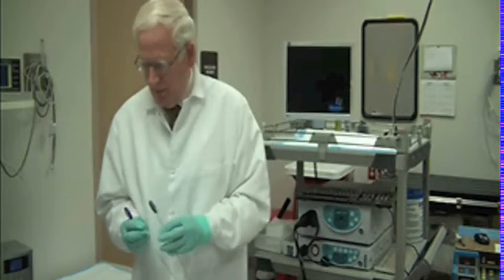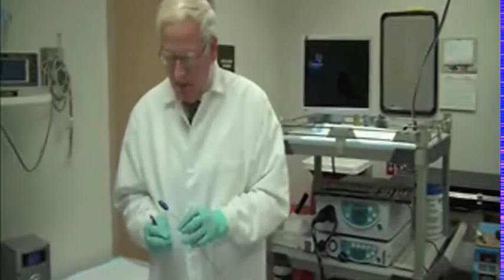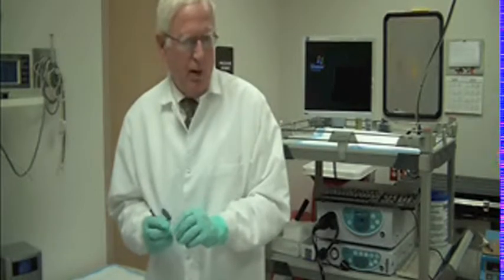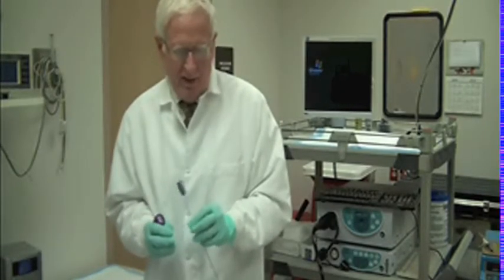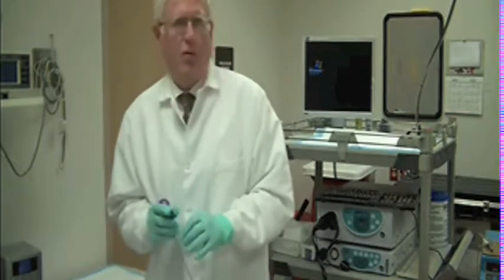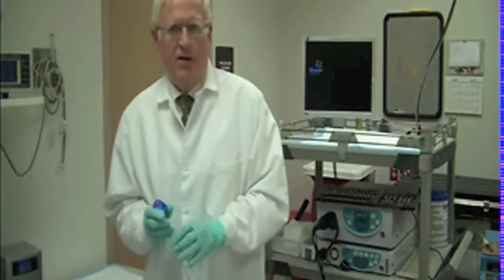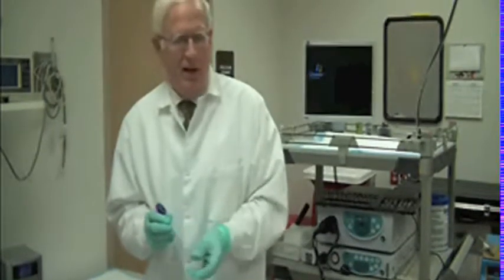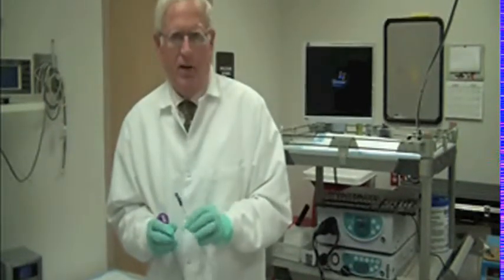I'm holding two of the devices here. One is a 1.4 millimeter wire, the other is the 1.6 millimeter wire. The blue one, which is 1.4, is our standard wire. It's 170 centimeters in length and fits in any adult colonoscope.